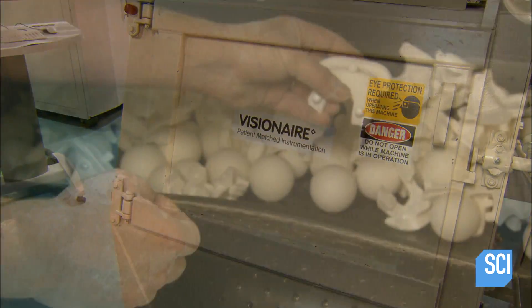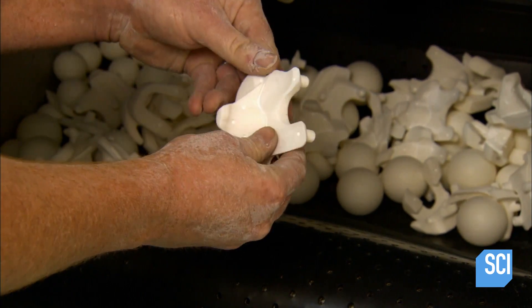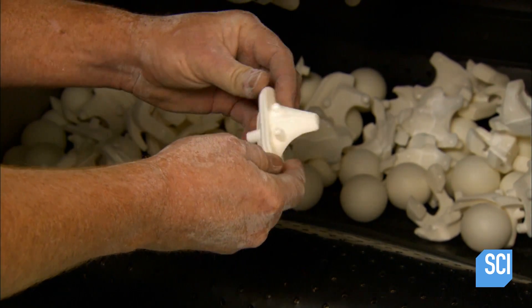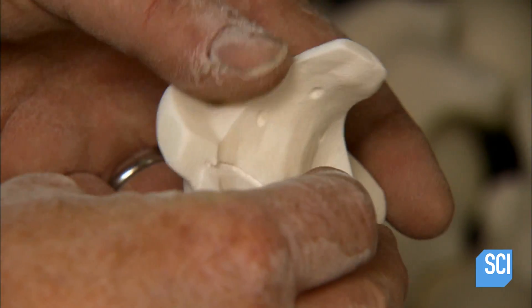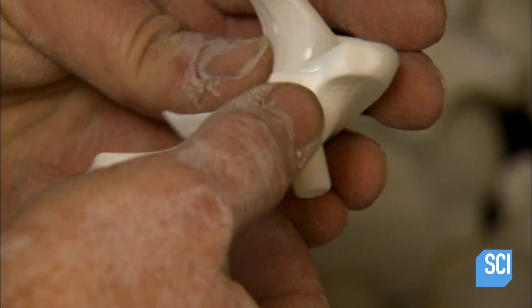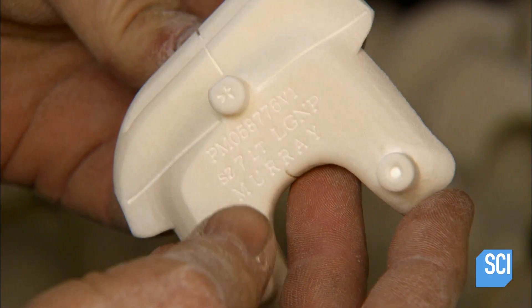The templates exit the tumbler 90% clean. They go through two wash cycles to remove the last remnants of powder. Before packaging, they'll be sterilized.